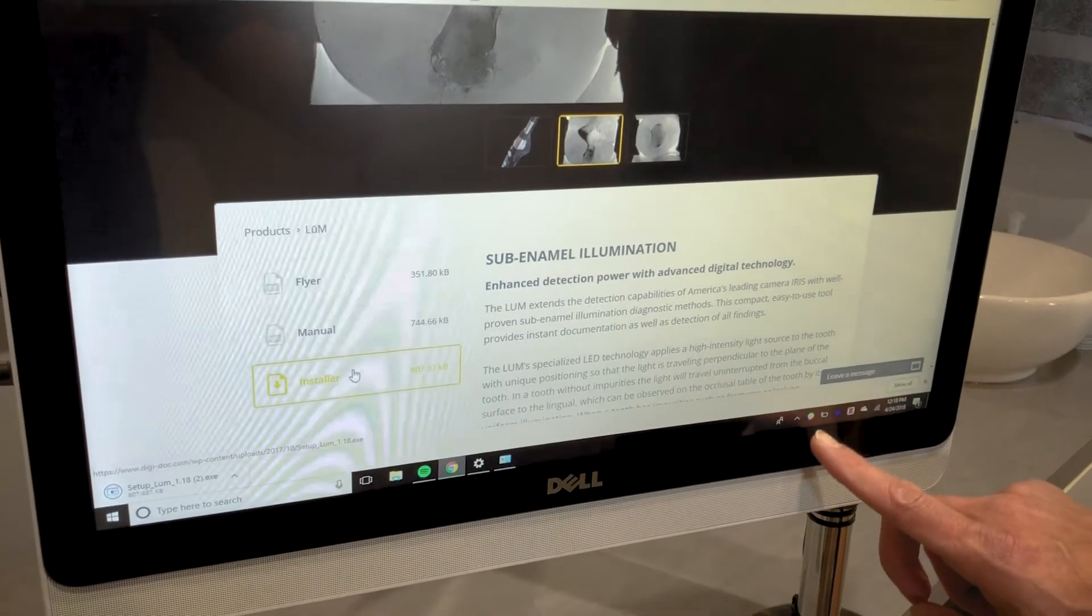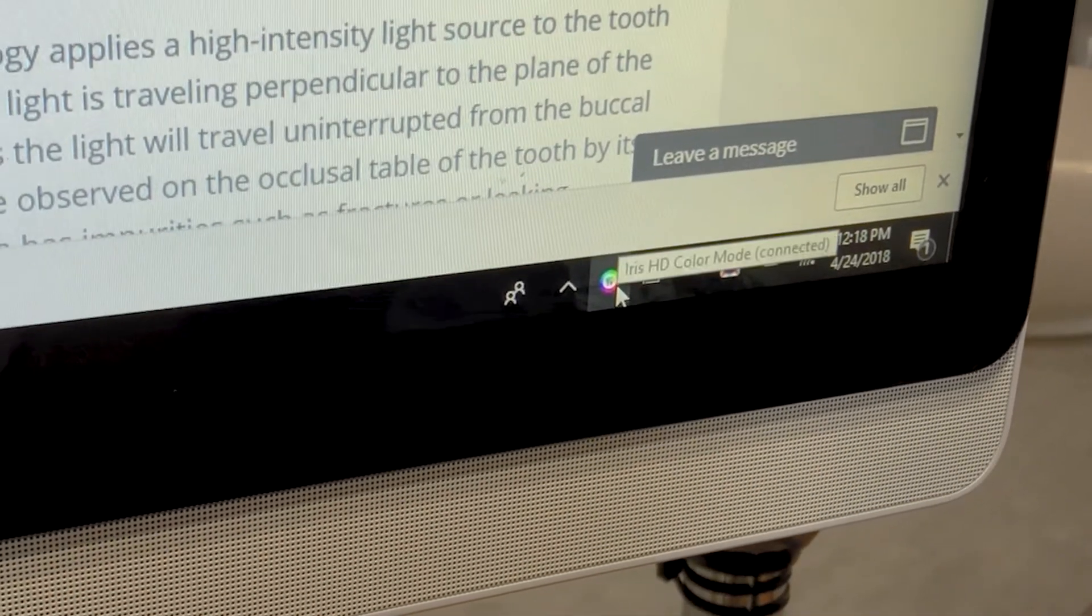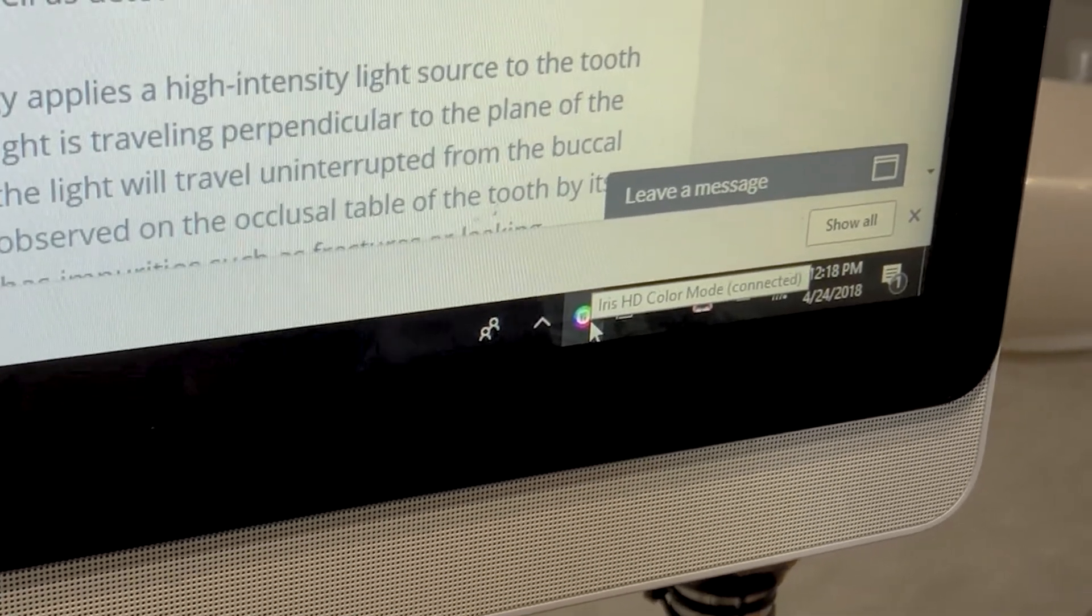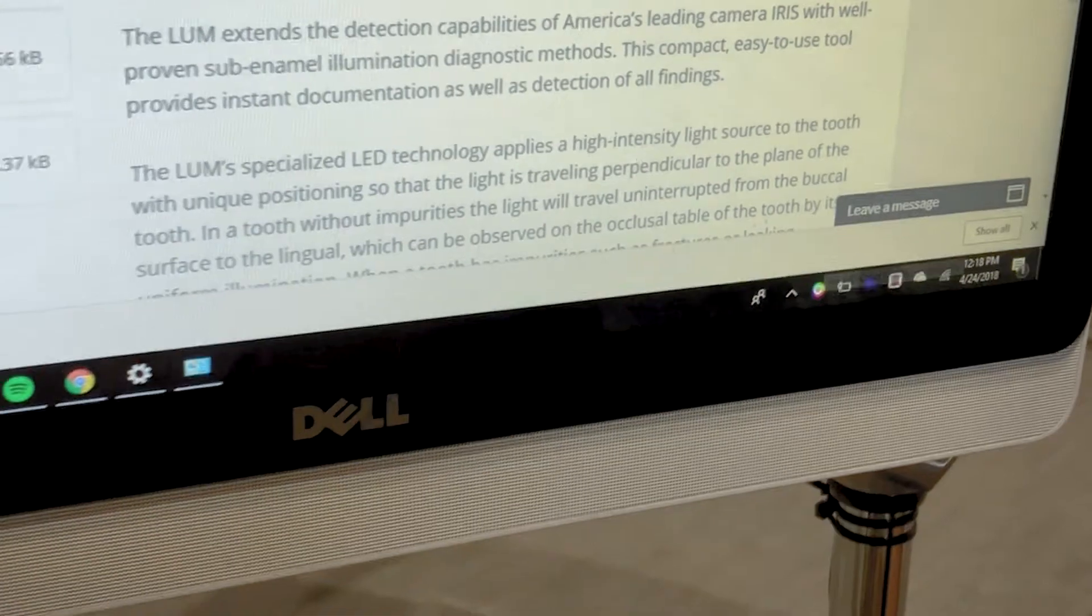It'll install and it's going to come right here, is what you're going to see in the bottom tray in color. This is when you're using the camera in color. You'll see that wheel right there. I'll show you what happens when we turn that black and white in just a second.